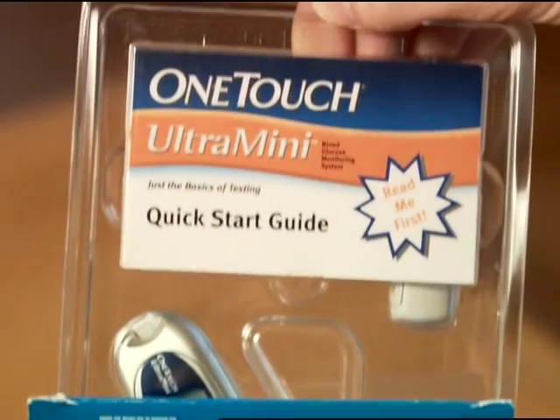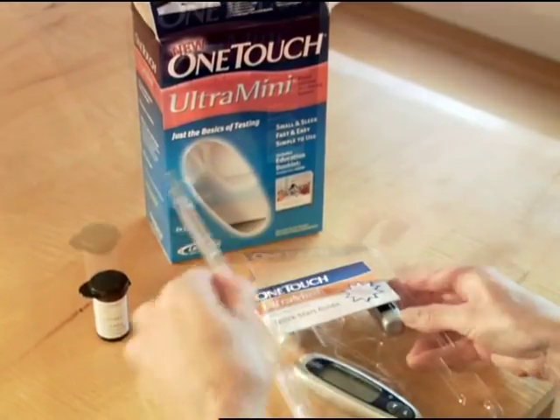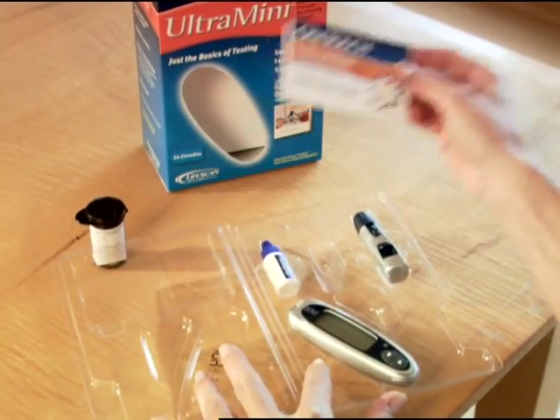One of the first things you'll find is the Quick Start Guide. This guide demonstrates step-by-step many of the procedures you will see in the video.